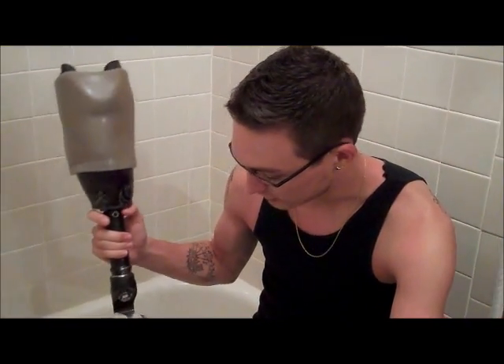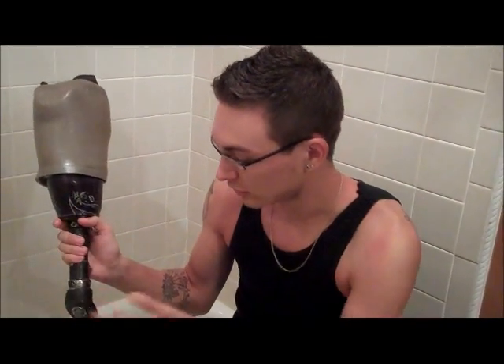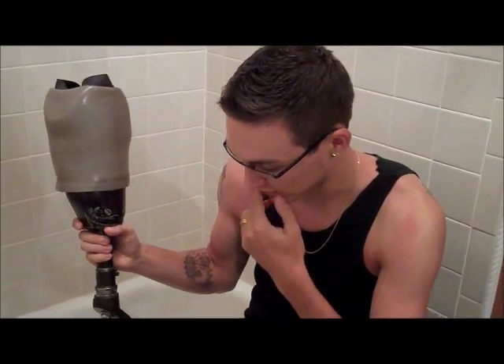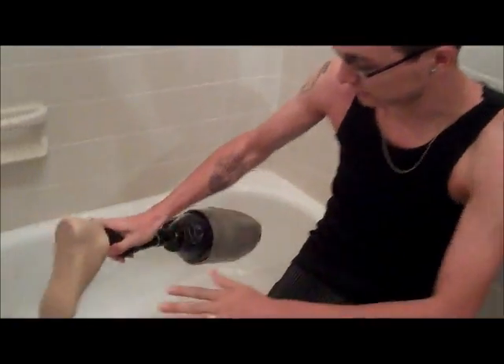Alright, I just got back from the beach. I just wanted to make a video real fast about how to properly clean and dry a leg if you get it wet with salt water. Lake water is not really that bad, but salt water will do a lot of damage to your little components, like the nuts and the screws and the bolts and everything. So this is a quick video showing the proper way to clean it, as I was taught, and I'm just going to try to pass it on to you.